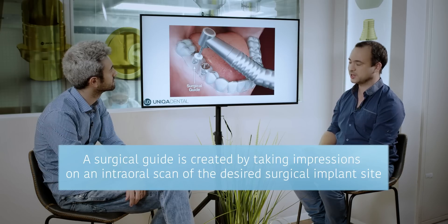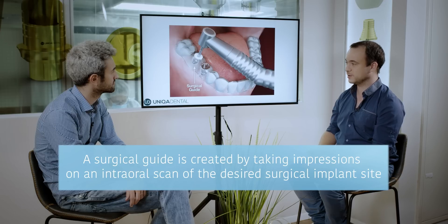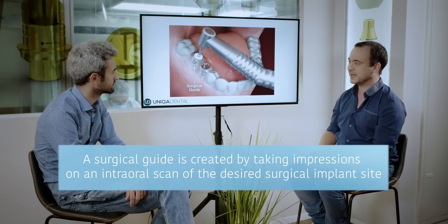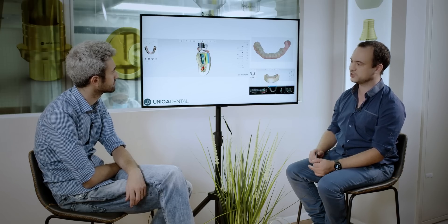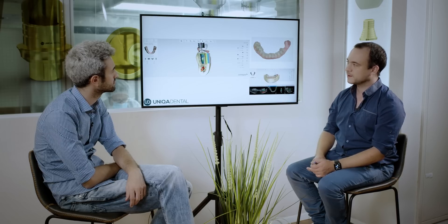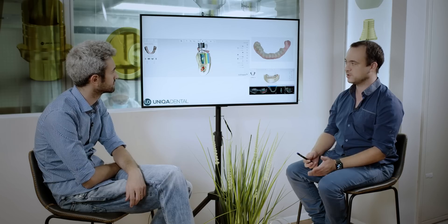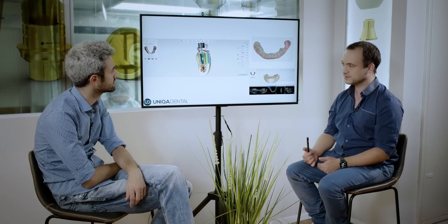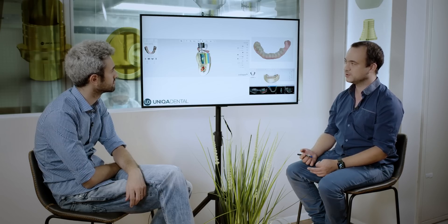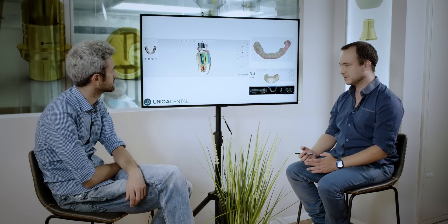Now we can make a surgical guide, or if the position of the implant is very easy we can position it even free-handed. In these cases we will show with a surgical guide. The surgical guide — here you can see a simulation from the Three-Shape program — is something that we can print to guide the implantation process. The surgical guide will guide the drills, and later on it will guide the implant to be inserted in the same position as we placed it digitally in the model.